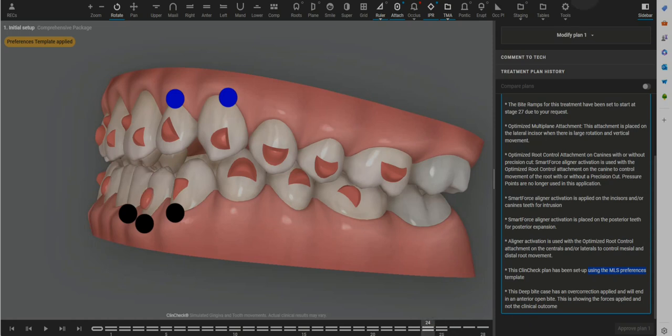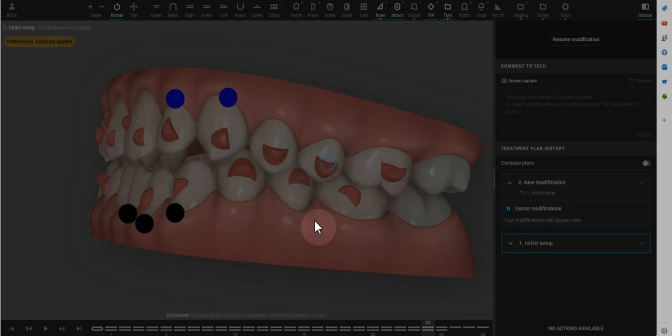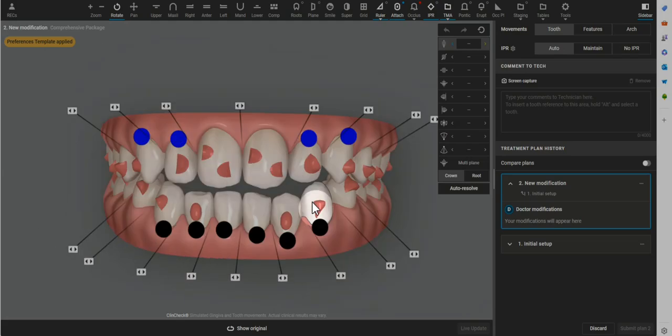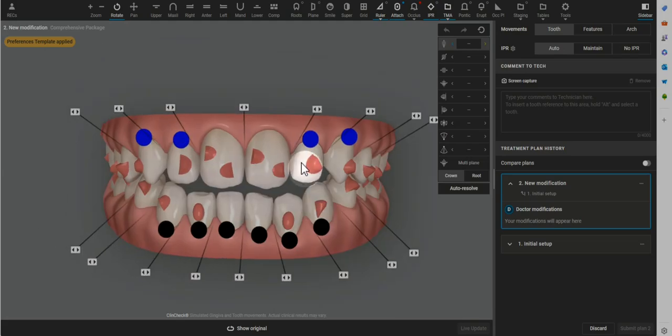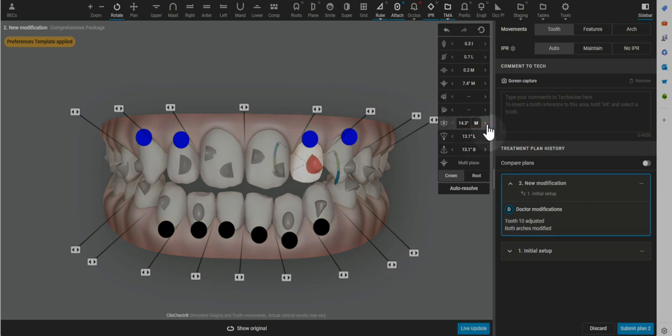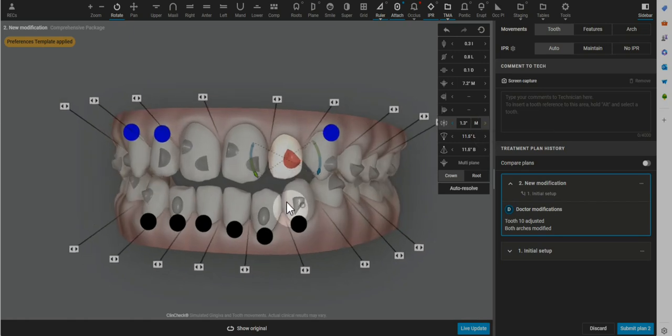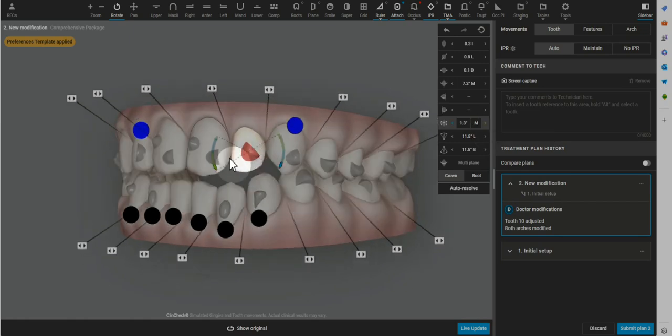So how do we make these changes? We can write them to the CAD designers, or we can do them with the 3D controls. I'll show some of the 3D controls quickly. So for example, this movement is what I want to get rid of or reduce all day long.